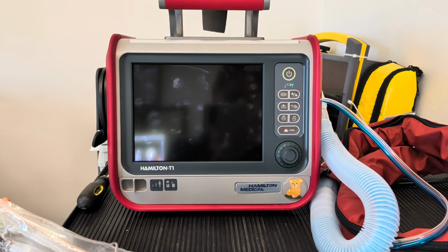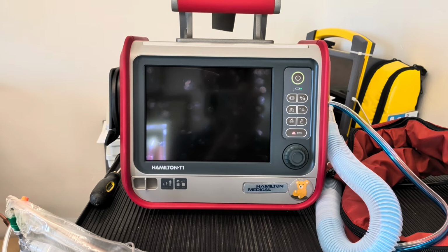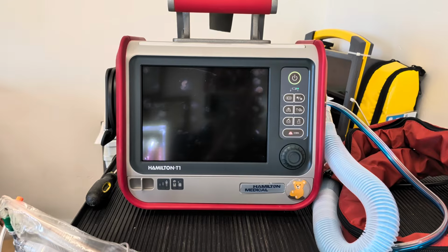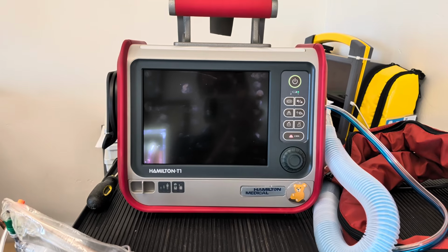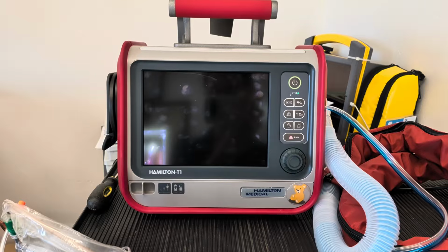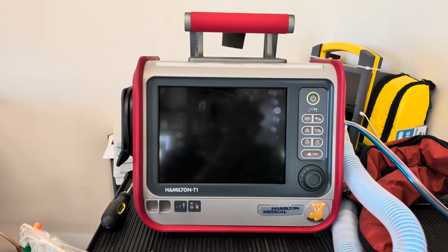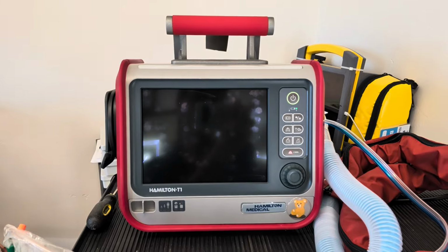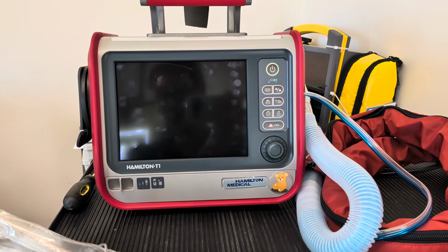Like I've said in prior videos, a lot of companies have their own take on ventilators. They have their own terminology, and they have a lot of proprietary names and definitions for things that fall outside of the standard conventions that are often used and taught when people learn about mechanical ventilation.